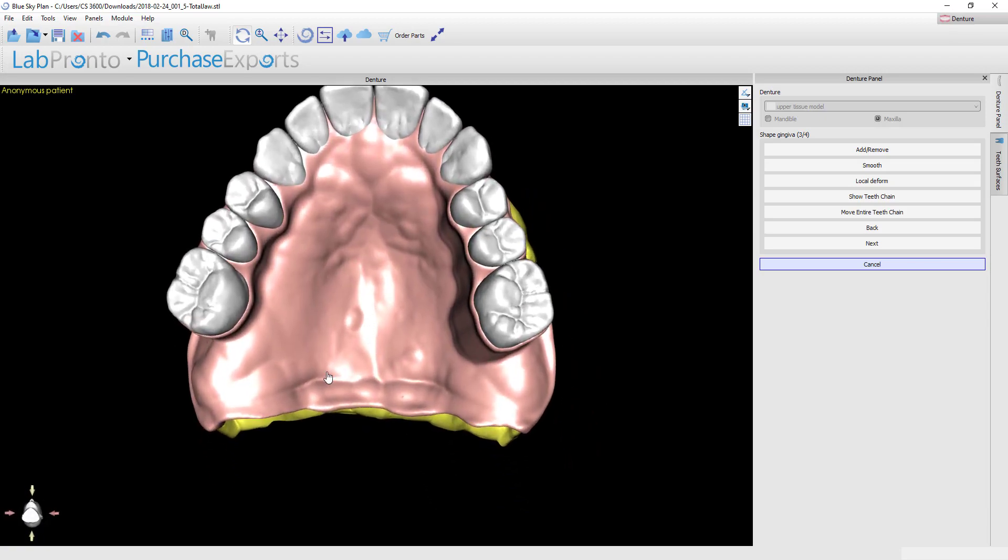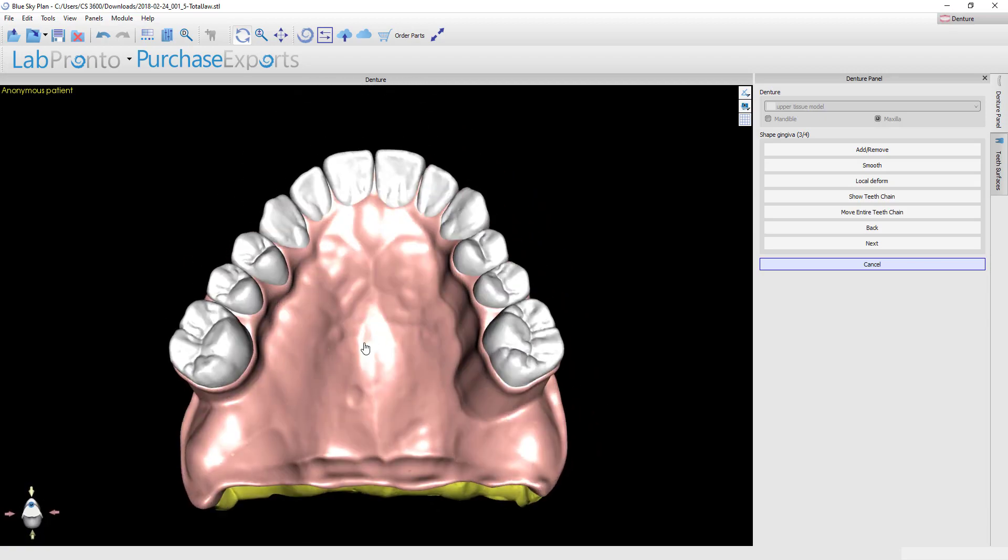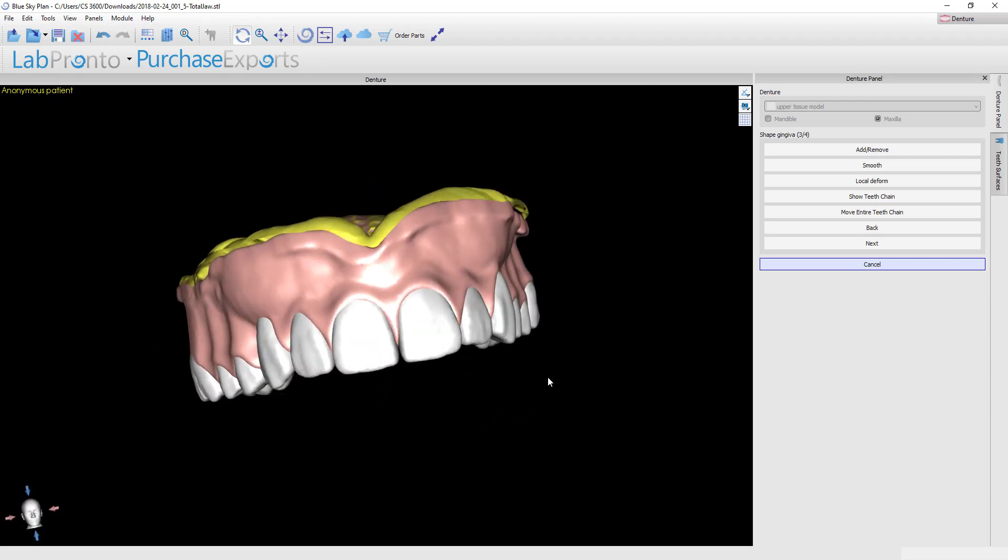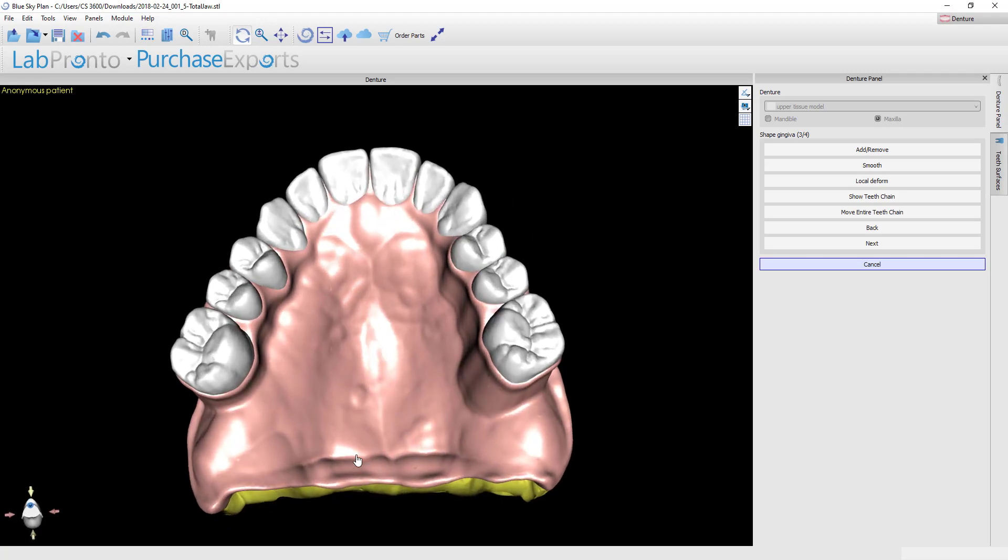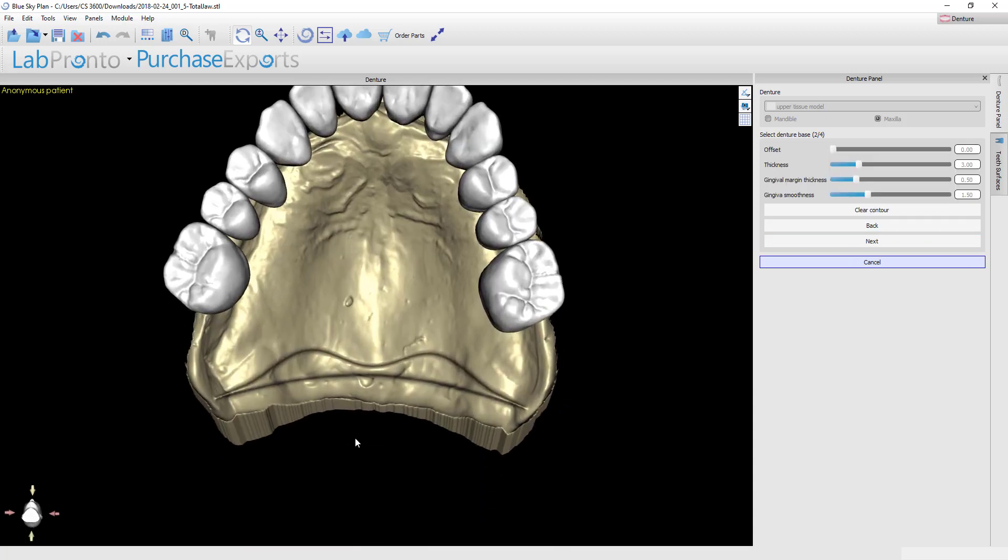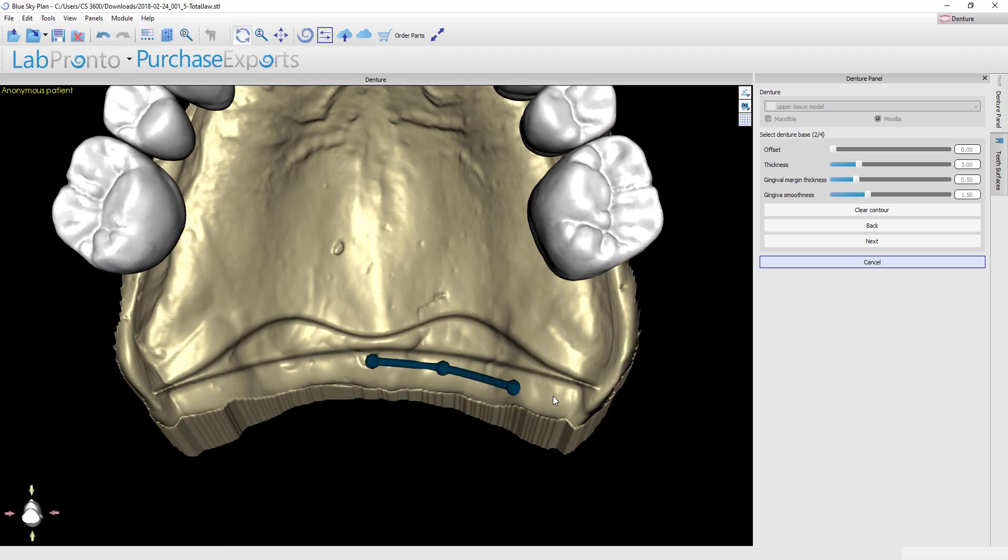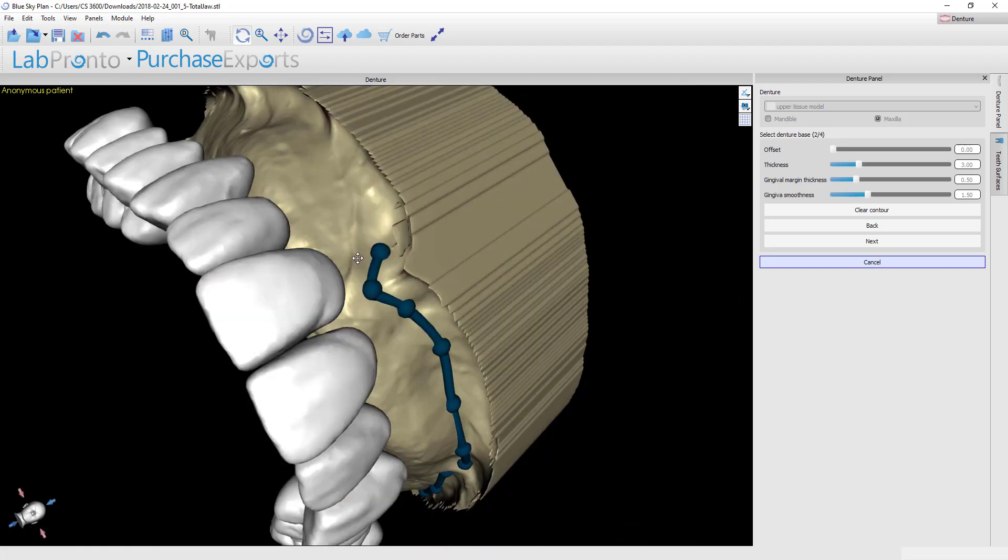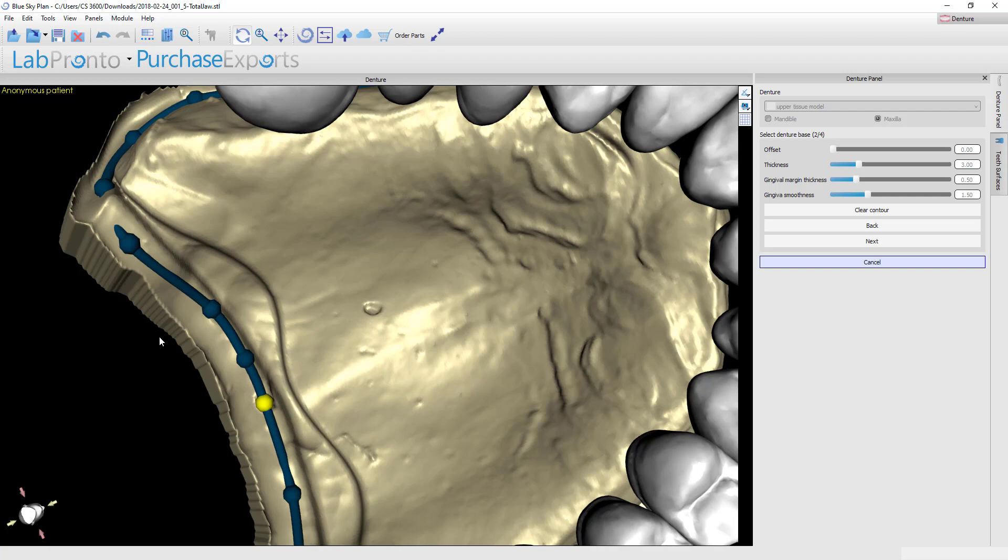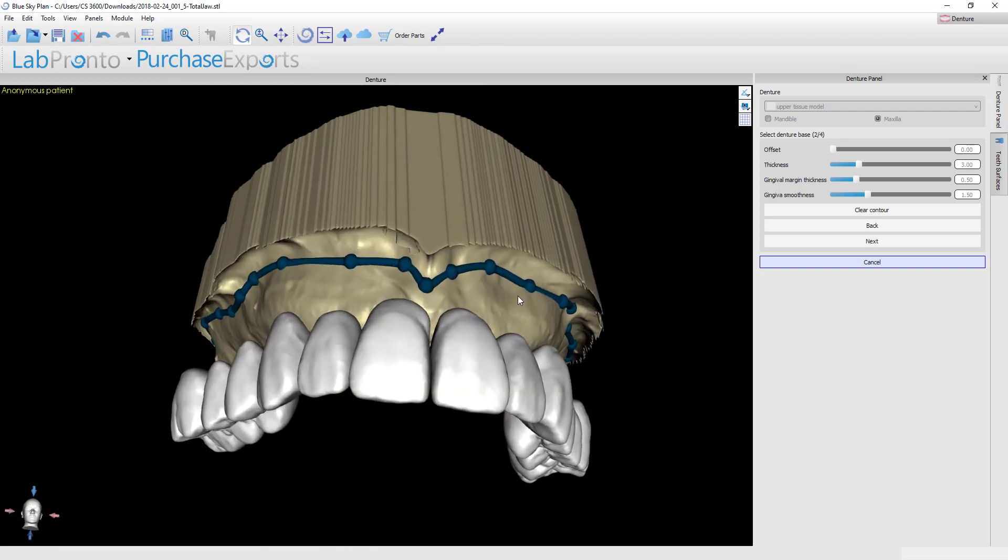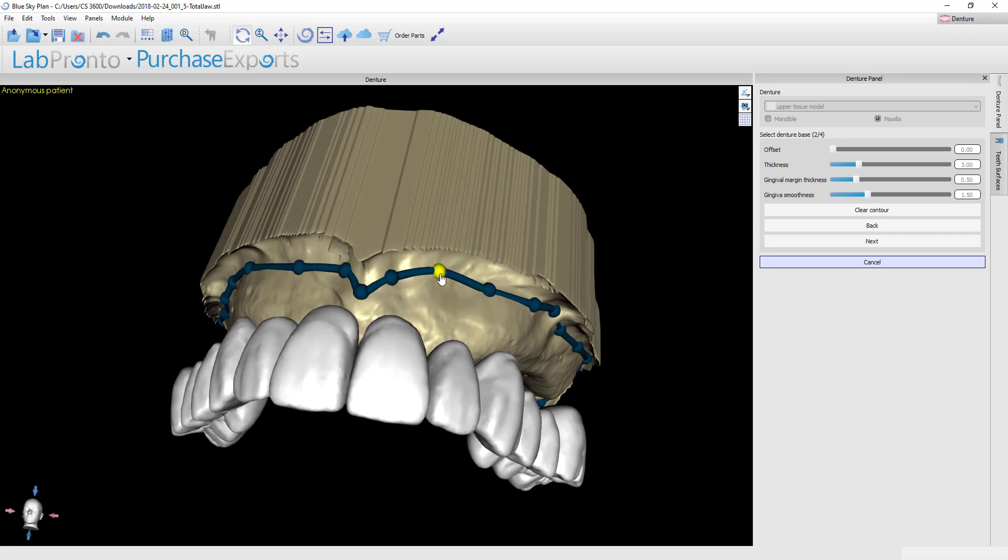Now I do want to go back and show you how you could alter the shape of this. If you look at this base and you think that you don't want as much anatomy in the overall base—you don't want to replicate the palatal surface—then you can click back and go back to the step to redraw your boundary. Remember when you get to the end, grab your last node and draw it into the first. If you look back at this and you feel like you need to alter the boundary, you can grab any of these nodes and by holding the shift key, you can reposition them.